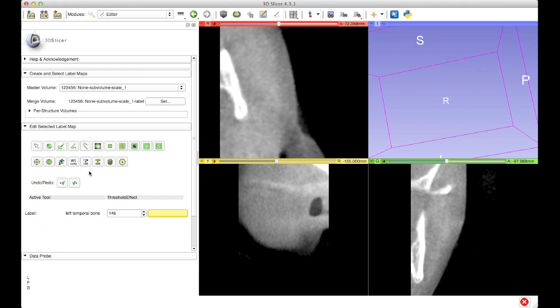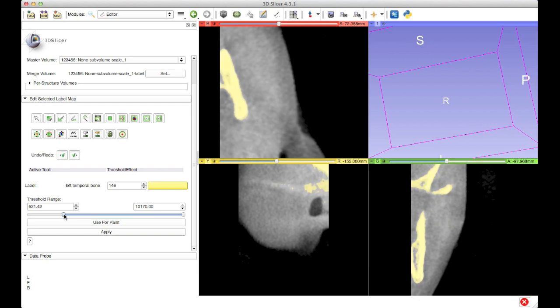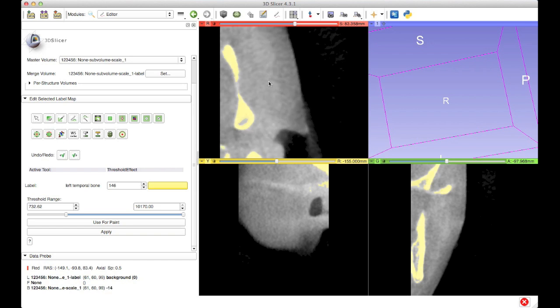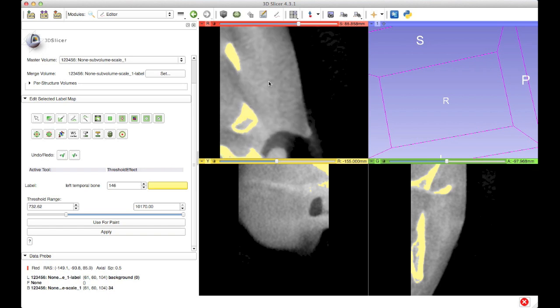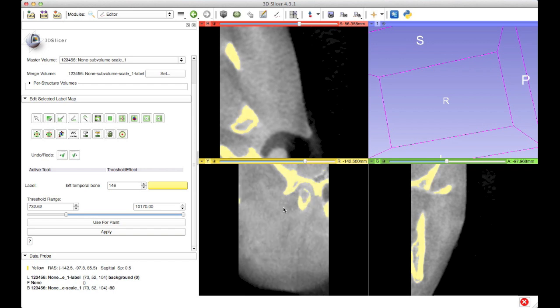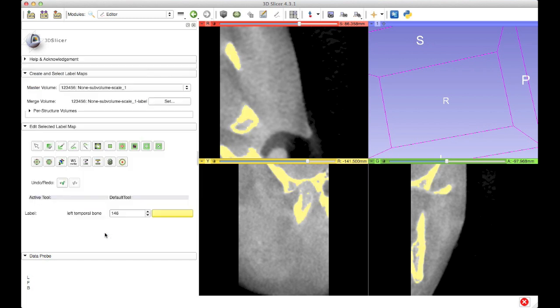To carry out that segmentation I'll use the threshold effect — this is the icon for it here. When I click on it, basically two values come up: the lower and upper bound of the threshold. Now it's clear that the bone comes up as a pretty high intensity, so I'm going to increase the lower bound of the threshold such that only high intensity values are included in the segmentation. I can scroll through here to make sure — this is a preview of the segmentation, which is why it's flashing. It looks like I've covered the bone in the sub volume and no really superfluous tissue, so I'm happy with that. I'm going to quickly check in the sagittal view as well — it's always good to check in more than one slice view. This also looks pretty good, so I'm going to hit apply in the threshold effect.